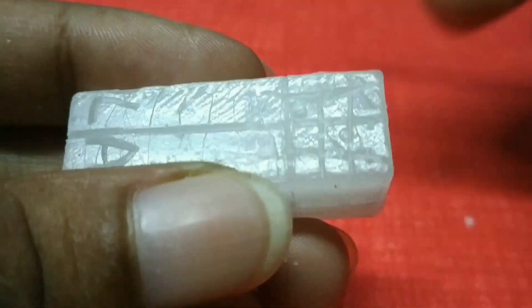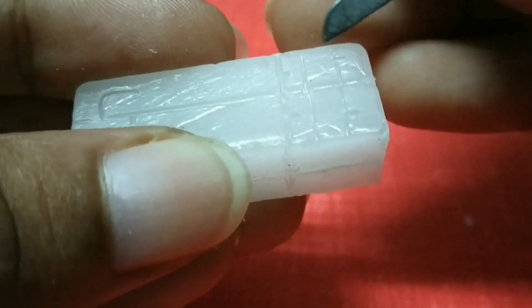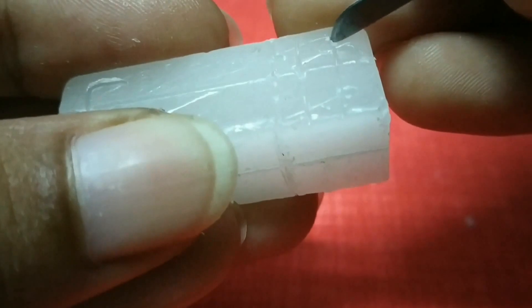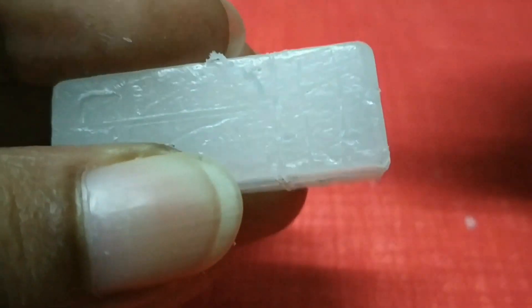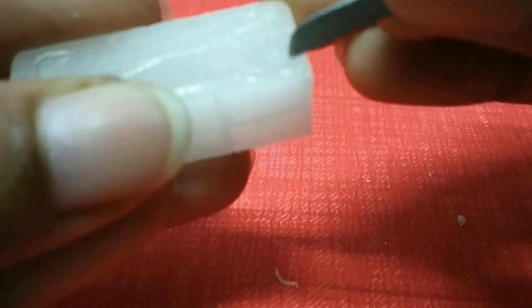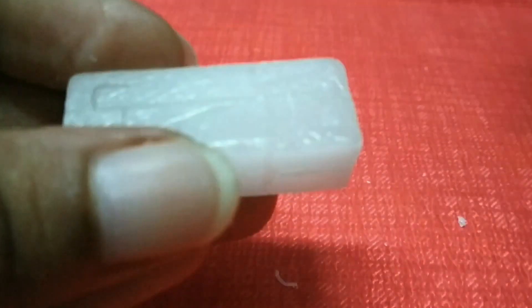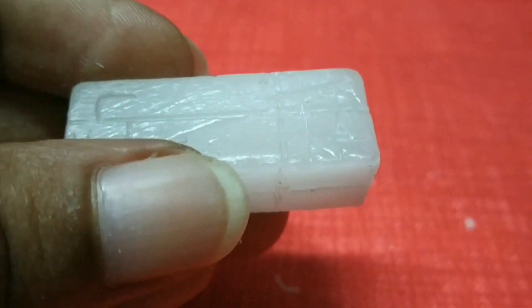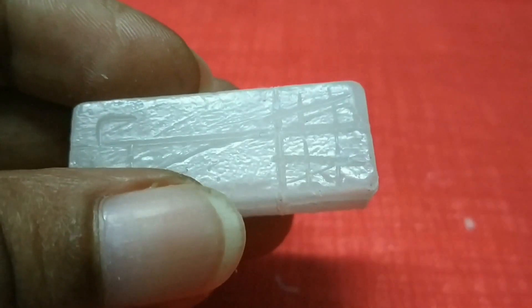Remove the excess wax material. Do this on the other side also, on the lingual side also. Now remove the excess wax part to get the trapezoid.